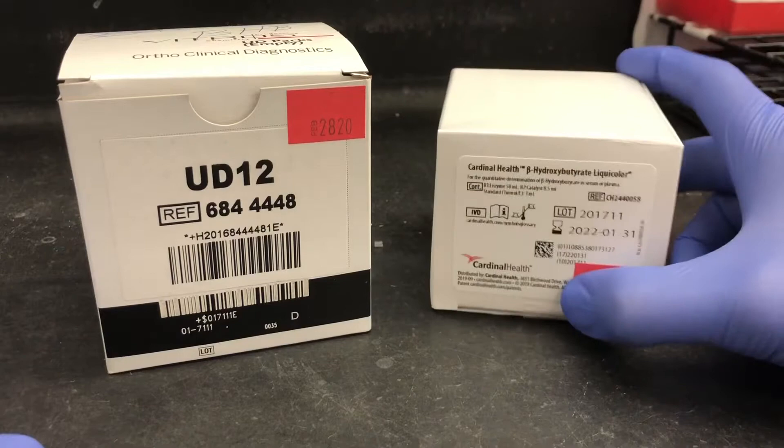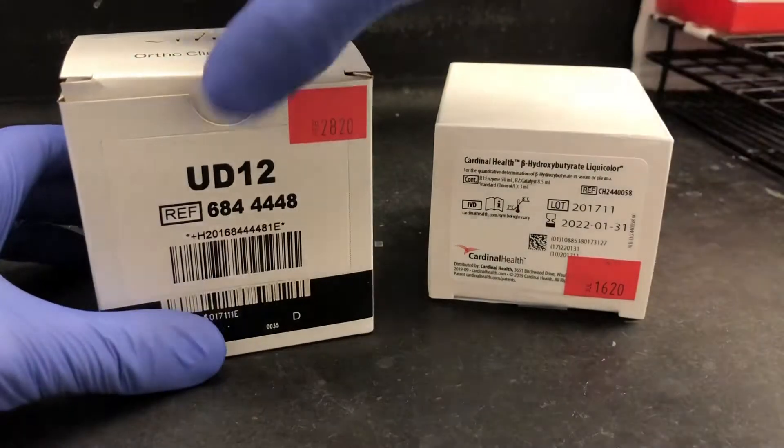And that's because we're using a Cardinal Health Reagent Kit, so it's a third-party manufacturer.